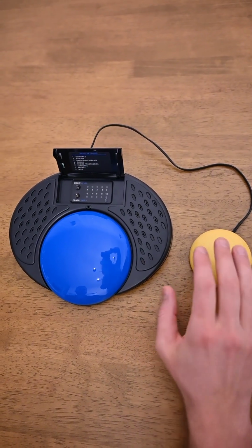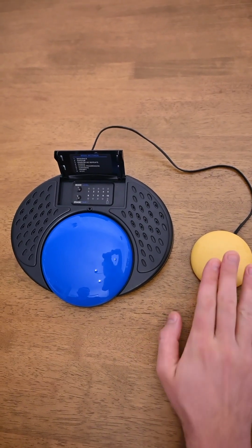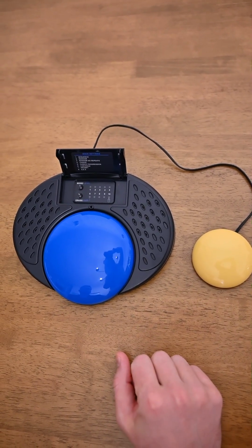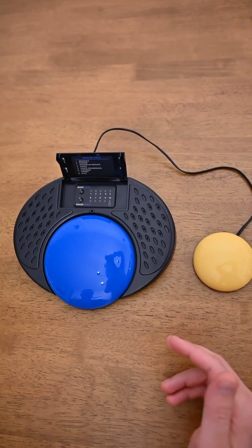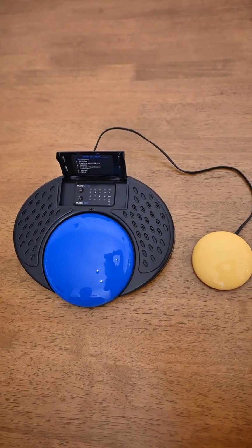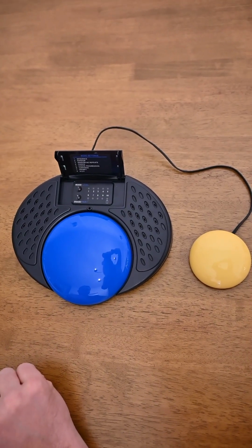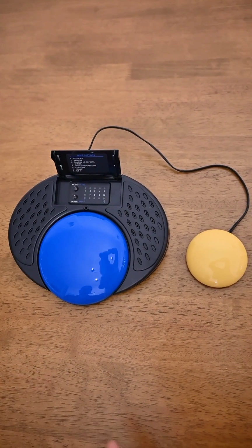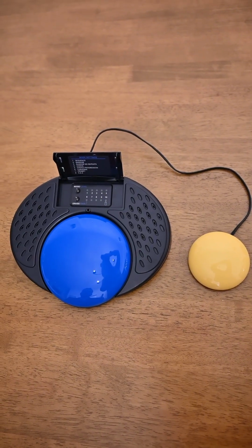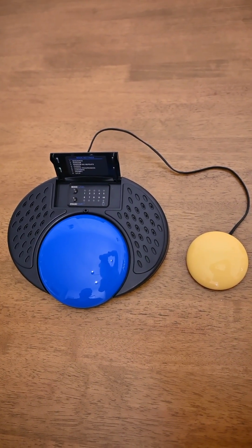And in case that needs repeating, we can press it again. What is your favorite color? And again. What is your favorite color? So you can keep pressing that to repeat the question until you hear the answer. Blue. And in case the answer needs repeating, Blue. You can press it again. So you can repeat the question and the answer. You have to hear both the question and the answer before you can move on to the next set of questions and answers.